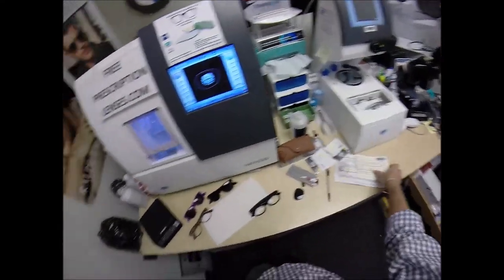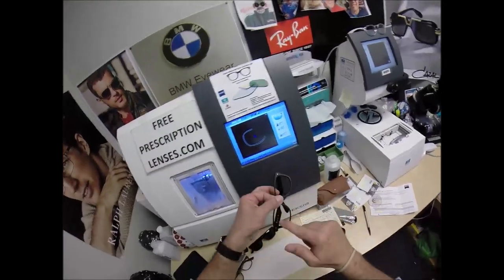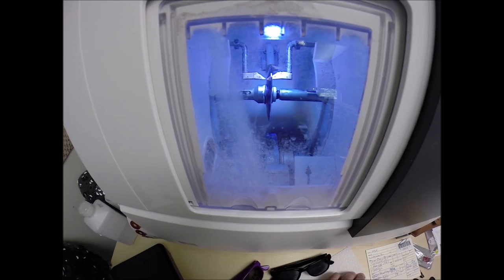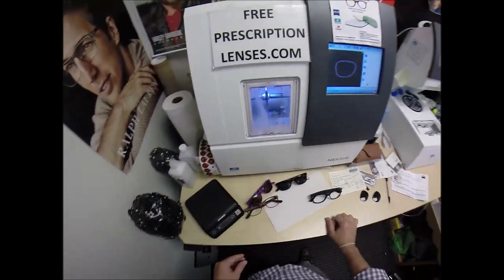Hit the green start button. The door closes, the clamp shuts. The lens is going to be traced by two white styluses, making sure that it's large enough to fit into the frame — tracing the shape of the right lens first. And then measuring the thickness of the lens at every point to know where to place the bevel for the least amount of edge thickness to show.